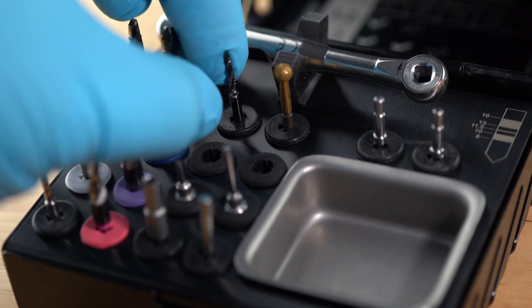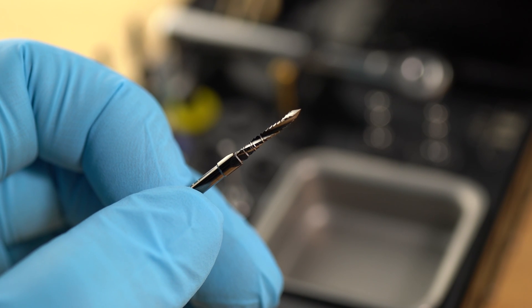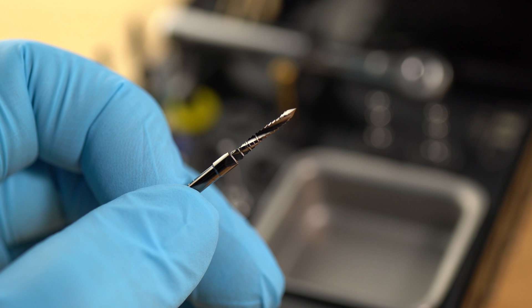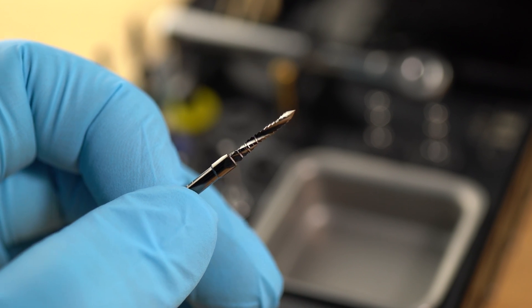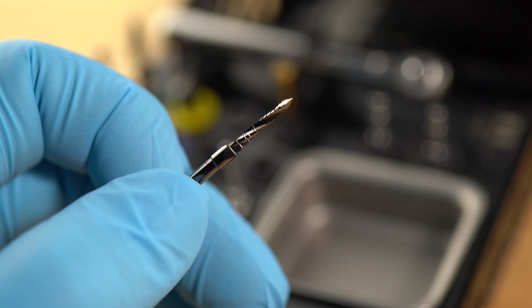This one is your Lindemann Pilot drill. It's good for use as a normal pilot drill, but it also has side-cutting capability. It can be a little bit aggressive, so you should be careful when you use it.